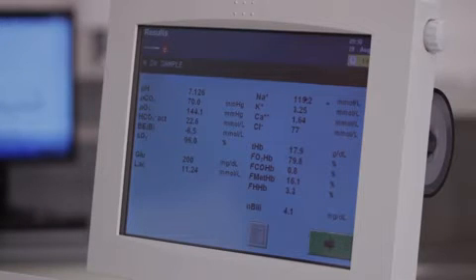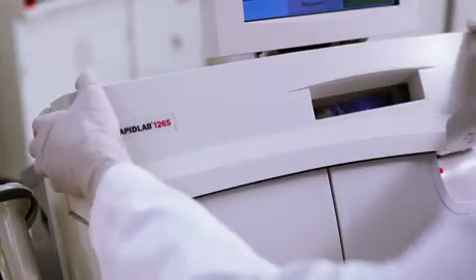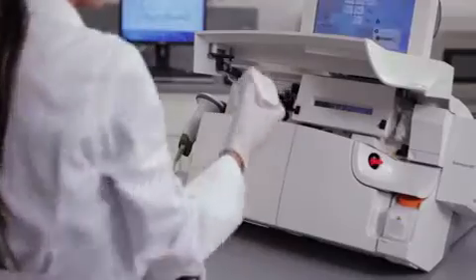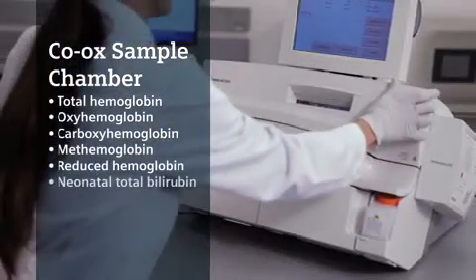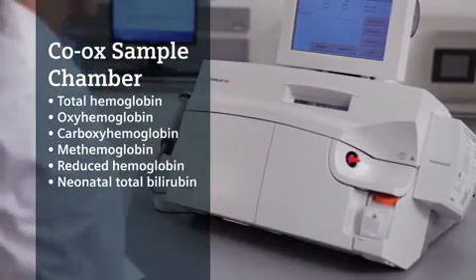The COOX sample chamber is unique to Siemens and utilizes whole blood slide cell technology, which eliminates the need to hemolyze the blood. The spectrophotometric reading provides results for measured total hemoglobin, the COOX fractions, and for neonatal total bilirubin.